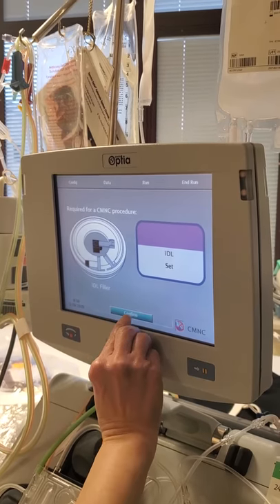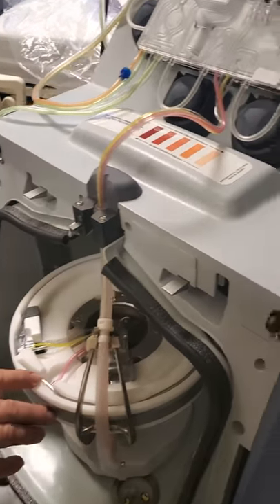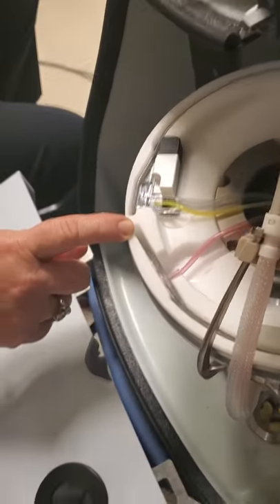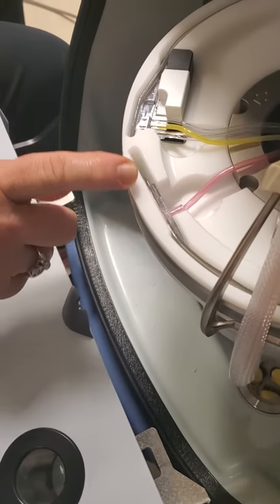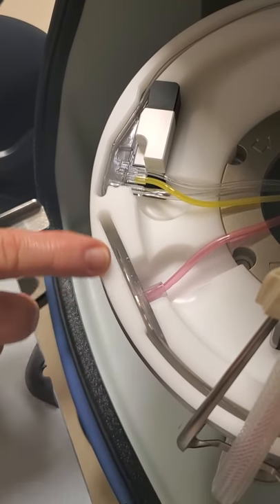I'm going to have you open that centrifuge door one more time. I want to point out something that people usually notice — you'll see how this channel does not fully fill the groove of the filler on this side. That is because during the run, the patient's blood will fill this channel and the channel geometry will expand and fill the rest of the space. So this is not anything you misloaded; this is correct the way it's loaded.